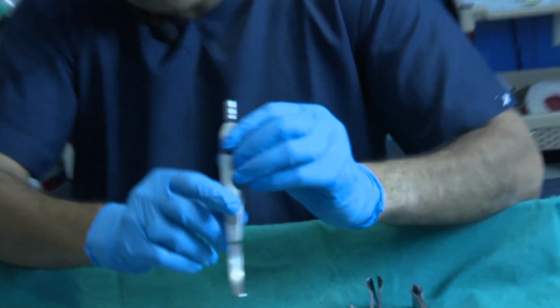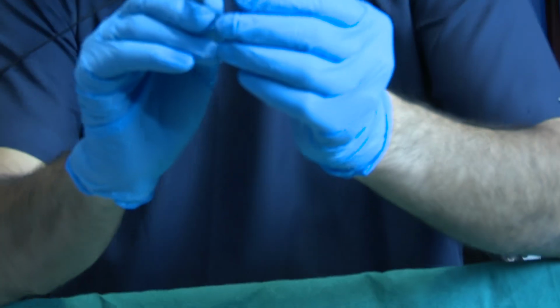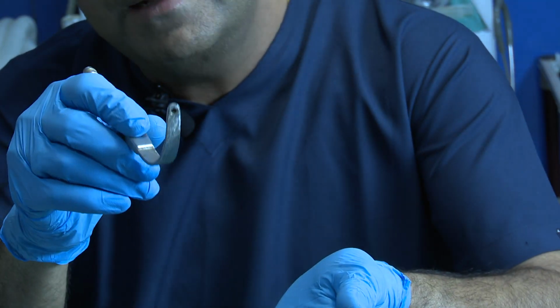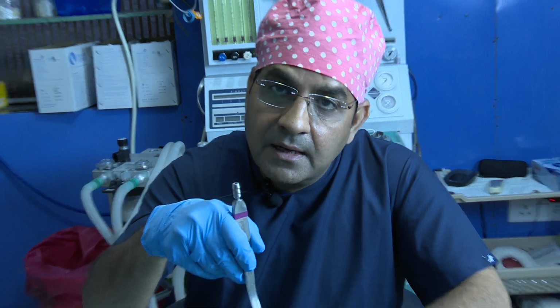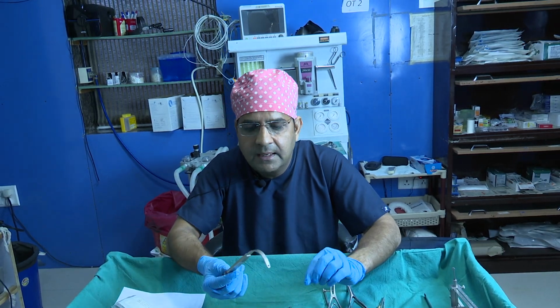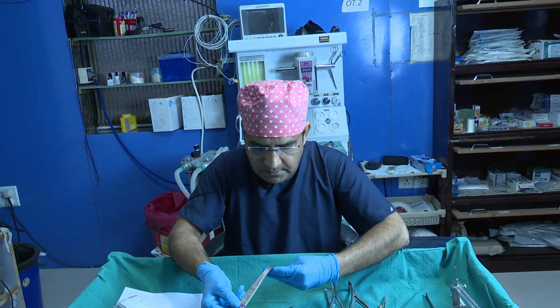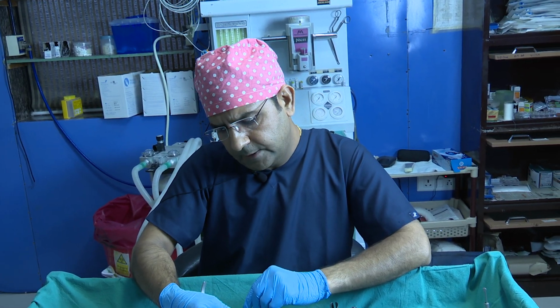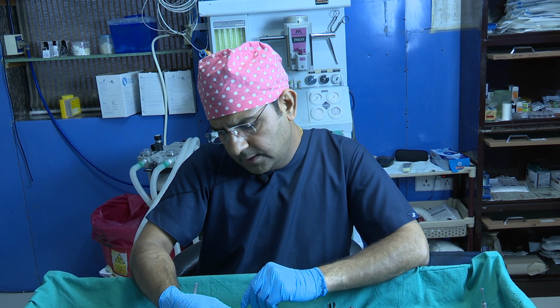So this is the suction and elevator also. We have a slot on the terminal part of this one. Because the bone is quite big, the entire bone dust is lifted up simultaneously. Otherwise it's very difficult, the bone dust collects there. This instrument is, I think, by Dr. Abdul Goksel. So Goksel invented this one, and I think you can find it from Marina Medical. This is the Goksel periosteum elevator, suction with the periosteum elevator.